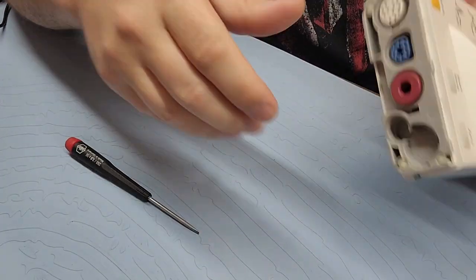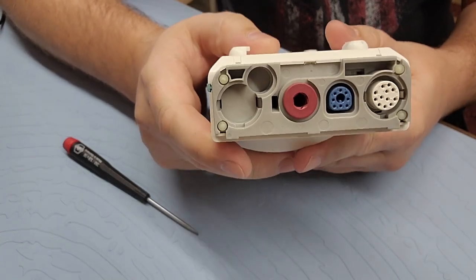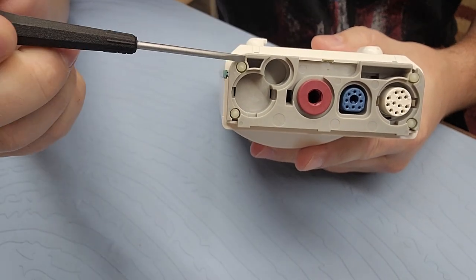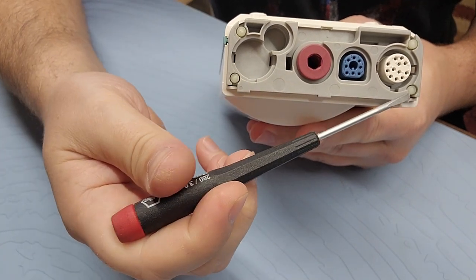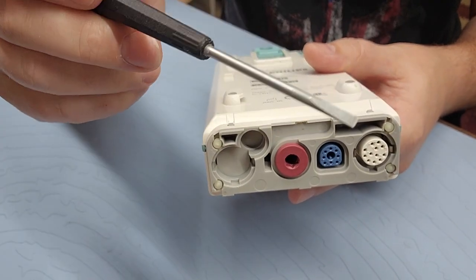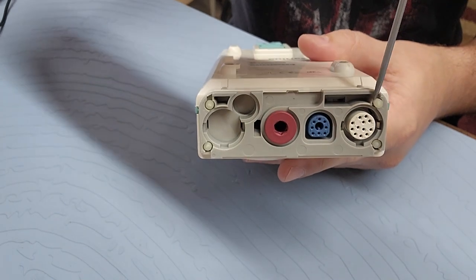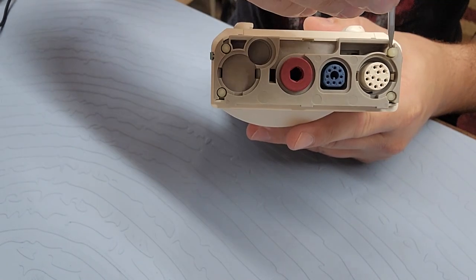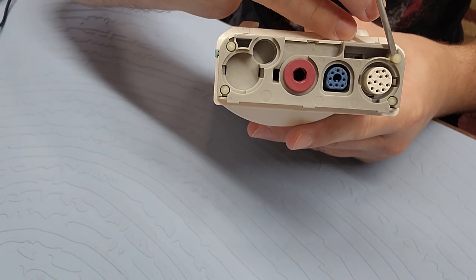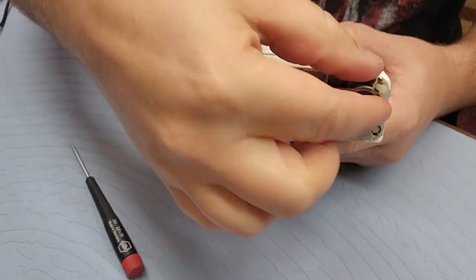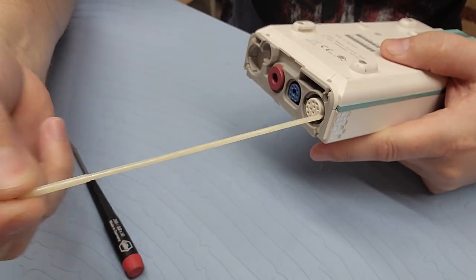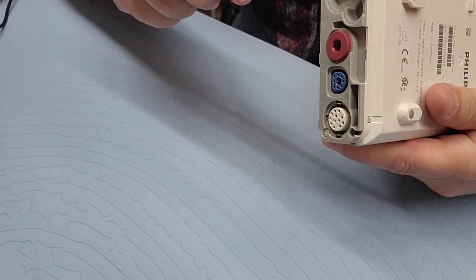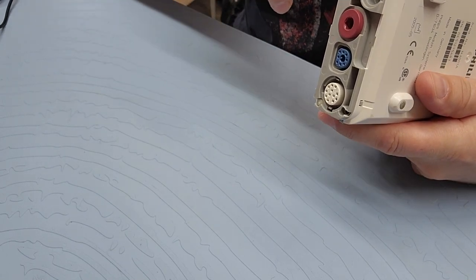So from here, if you take a look, it's got these rods. So I've got one rod, two rods, three and four. And again, the small flat blade screwdriver, kind of pop it in there. I just kind of roll it and that pin wants to pop right out. And then you pull the rods out. Let's go ahead and pop the other ones out.